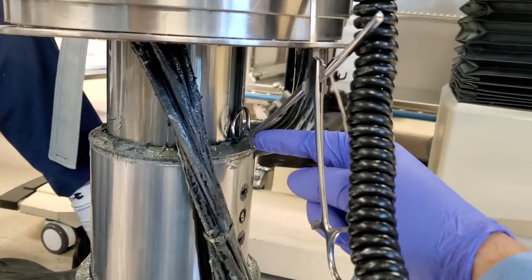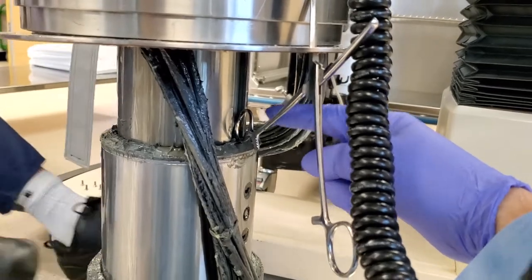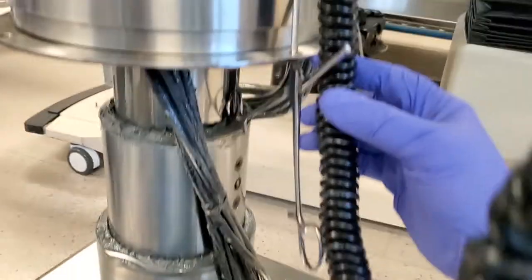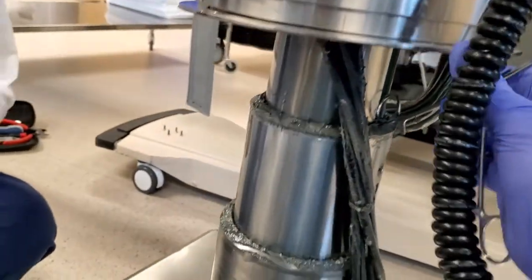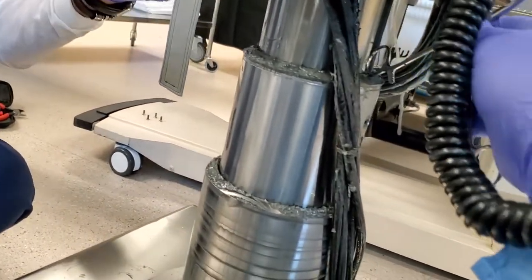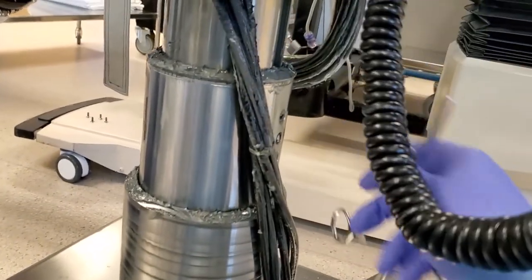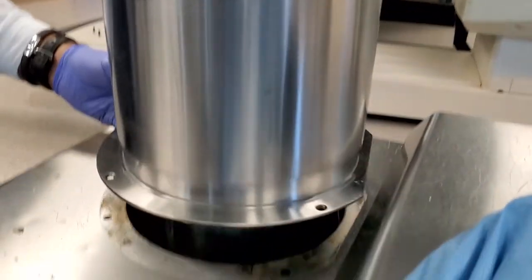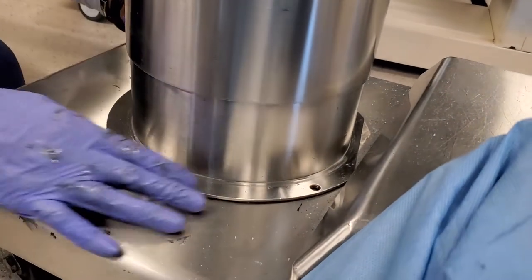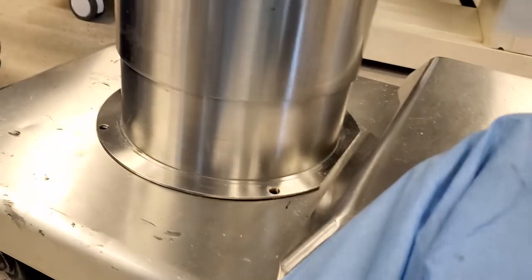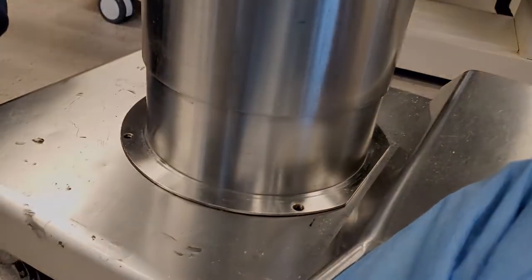Okay, you can see I've got my hemostats wedged in on this table in this little groove, and it's in the hole. We're going to drop it down and line it up right now. Okay, ready? Okay. Make sure the ring lines up. Excellent. And four fasteners in the bottom, and we're good.